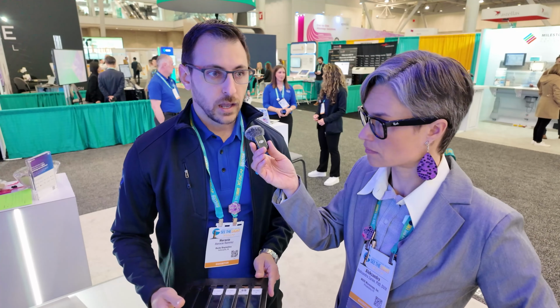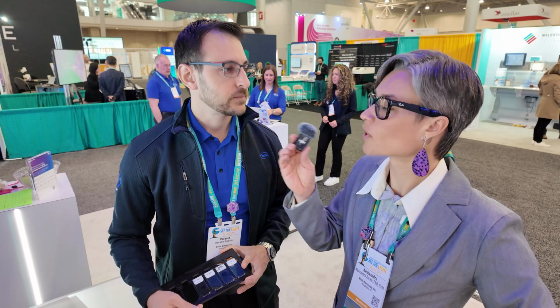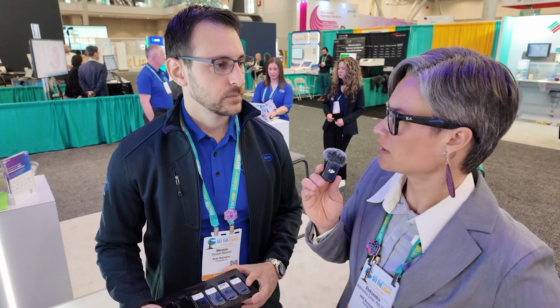Question, how fast does it scan? 15 by 15 millimeter, which is the standard area that all the scanner manufacturers use for benchmarking, exactly. At 20x, it does it in 49 seconds. And I want to clarify, that's the time to view. So that's the time it takes for the image to appear on screen, be ready to approve or move on, right? And at 40x, the same area takes 89 seconds. Okay, so 89 is 1 minute and a half, more or less.